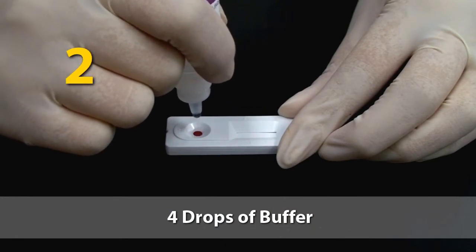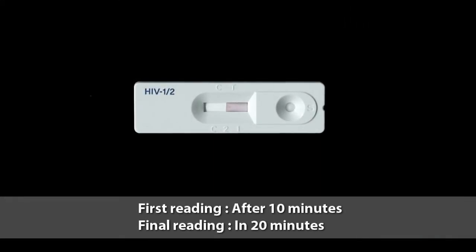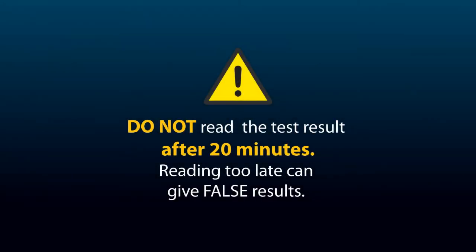One, 2, 3, 4. Read the result in 20 minutes. Remember, do not read the test results after 20 minutes. Reading too late can give false results.